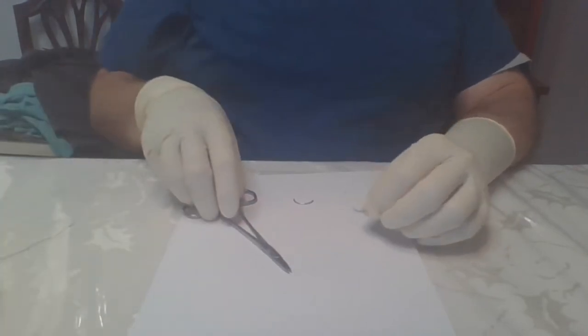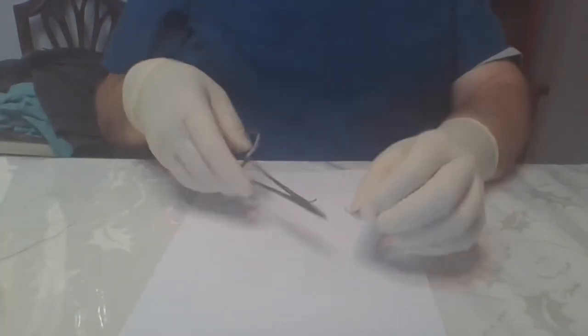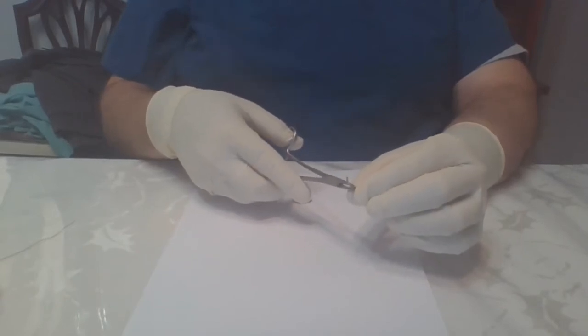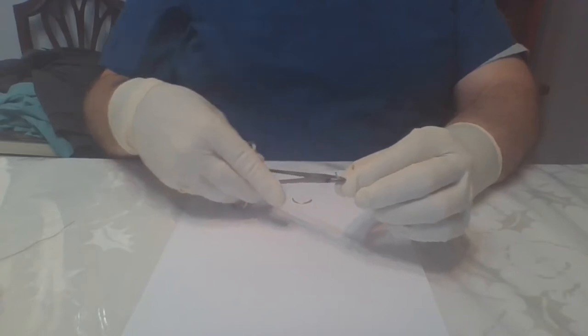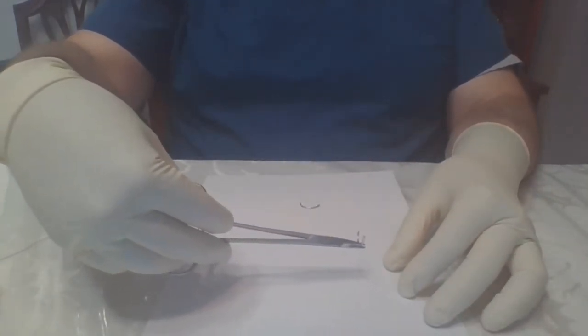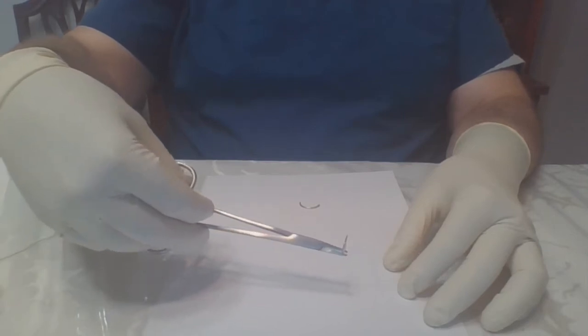So go ahead and open this package and I'll show you how to load this. The ones that I sent you are Mayo's. So this would be an OBGYN needle. It is taper and it's pretty heavy. You can see the eye of the needle. I hope you can see that on that side.